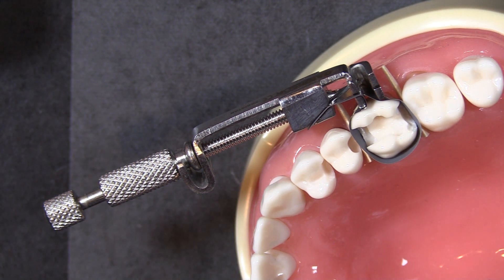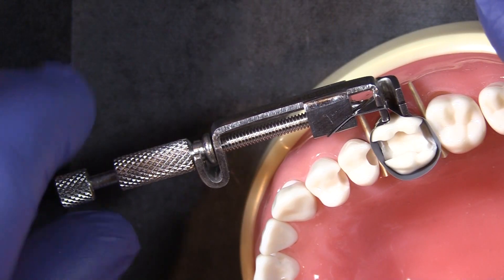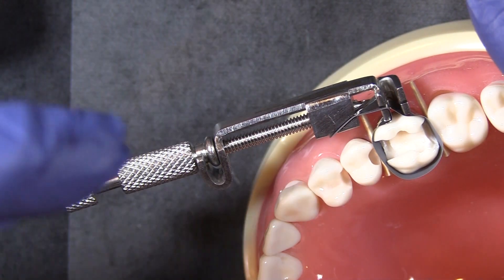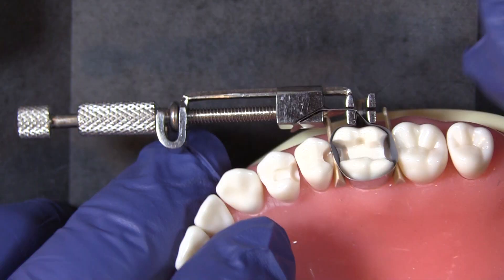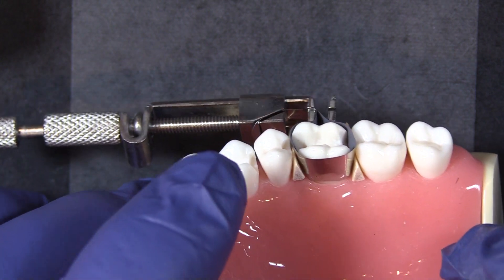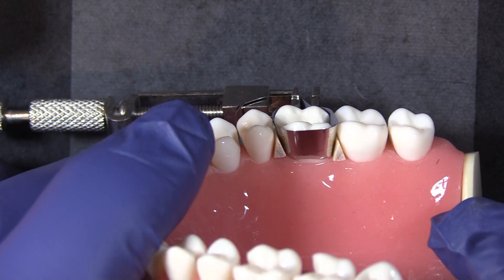However, there are some things about this that can make it less than ideal for a typical class two. You've got this big heavy retainer hanging out of the patient's mouth that can actually be bumped and dislodge the matrix band. They also have a tendency to cut the gum tissue as you're placing and tightening them down, and they can be a little uncomfortable for patients.